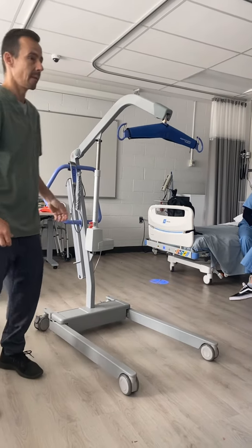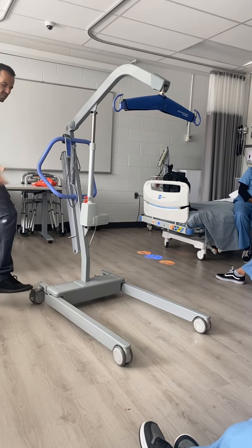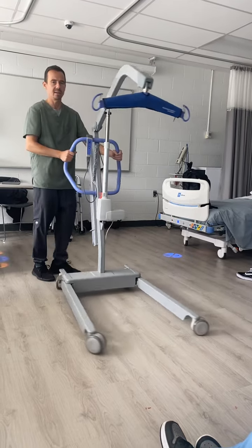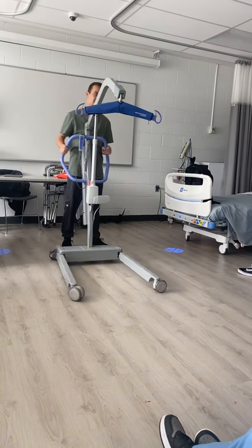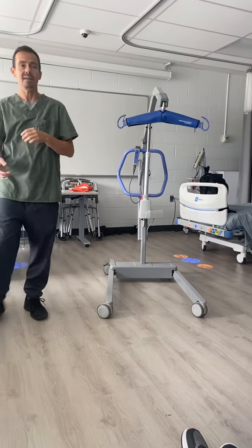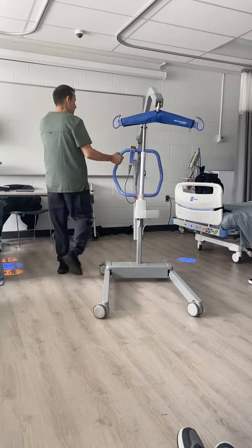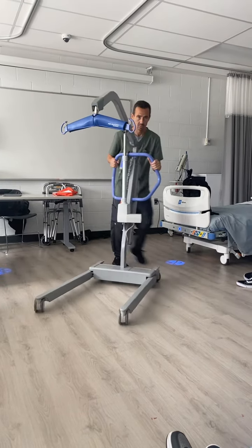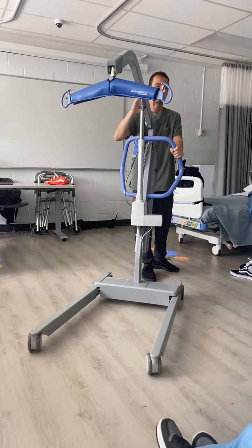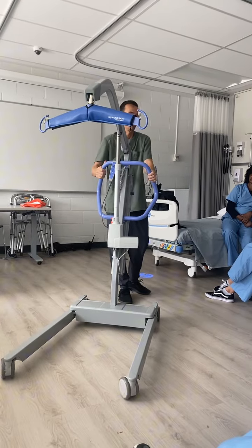We have brakes in that, so. Yes, all of those portable lifts have brakes. Usually they have only two and they're in the back. So you take them off and then you can take them from one room to the next. If you have a patient fall and they can't get up on their own or with your help, you're coming with the portable lift. You put it over the patient and you use the portable lift to get the patient up off the floor if there's a fall.